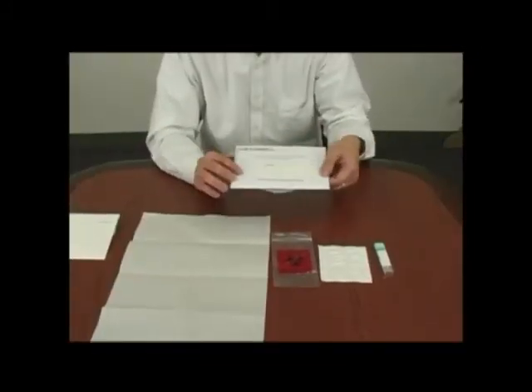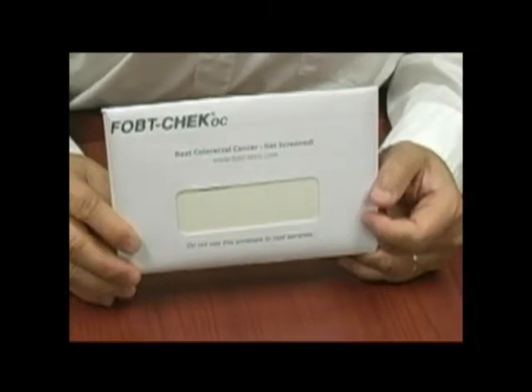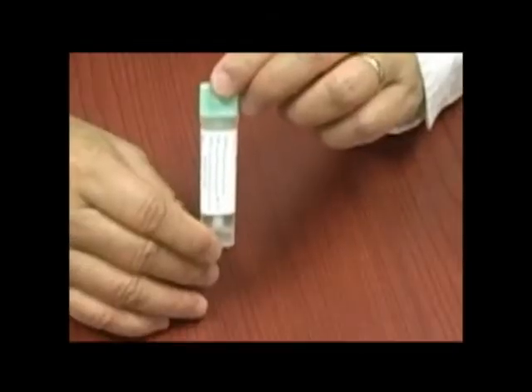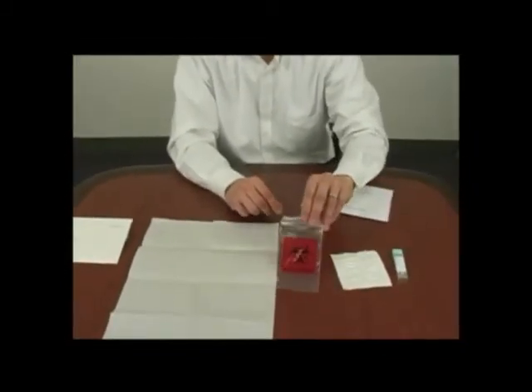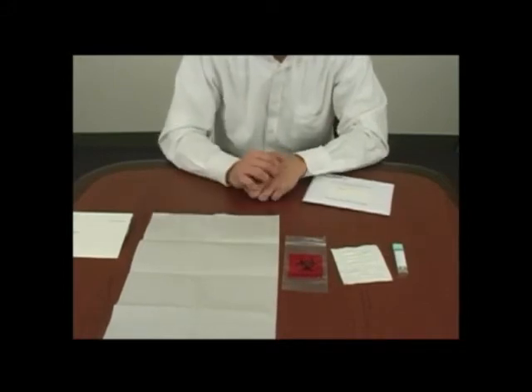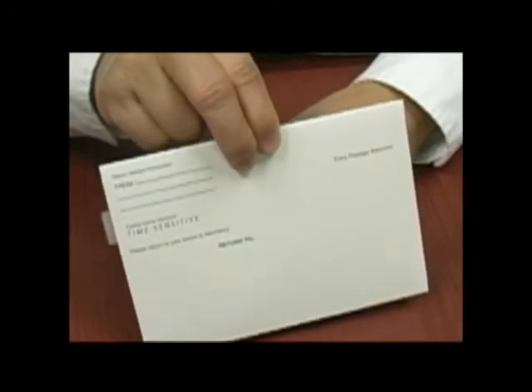This is one type of FIT kit. It comes in an envelope. The envelope contains a small plastic bottle, a wrapper, a zipper bag, and a large piece of folded paper for collecting stool, and an envelope to mail back the sample.